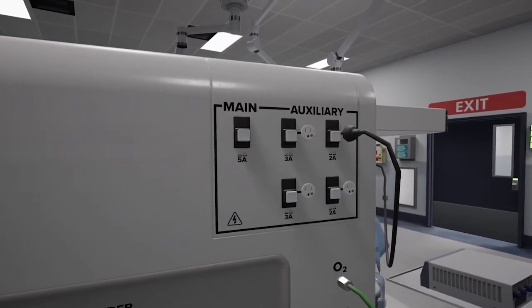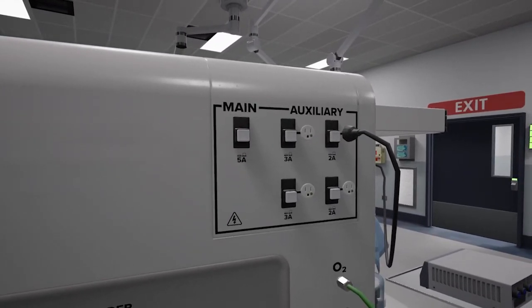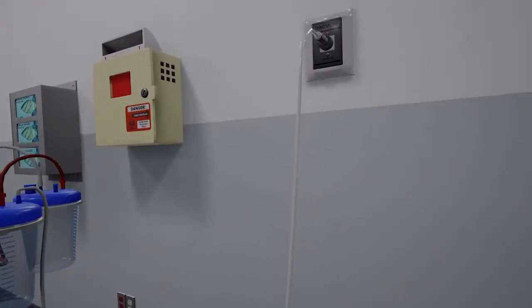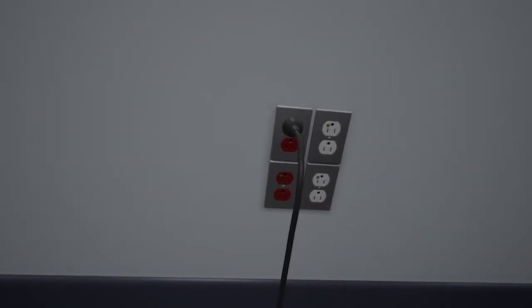So it's extremely important that you never allow anyone to plug any devices other than anesthesia monitors or anesthesia devices into the back of your machine. And I'm going to show you one other reason why that's important.